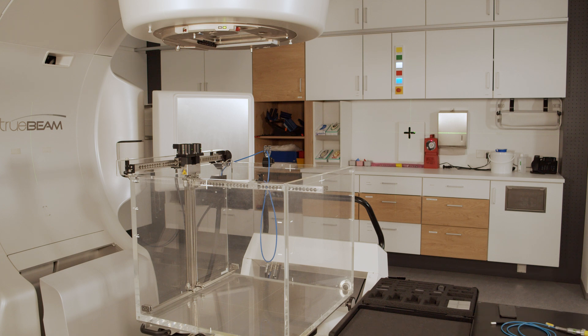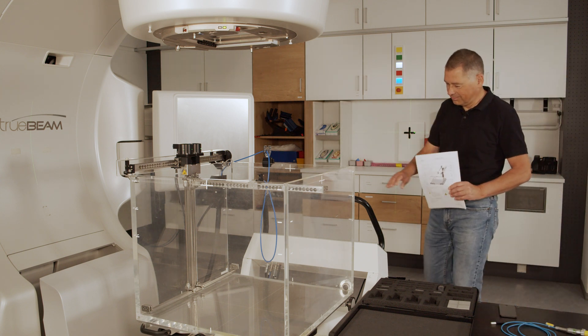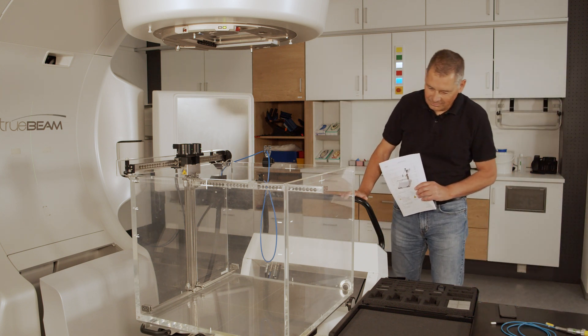Hello! Welcome to our visit at the radiotherapy department. Let's have a look at what they are doing there so late in the day. A medical physicist is just arriving. He works in this field quite long and has a lot of experience concerning measurements and the appropriate equipment. Recently, lucky guy, he has received a new BeamScan water phantom from PTW.